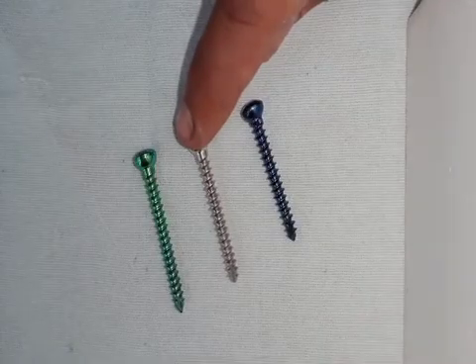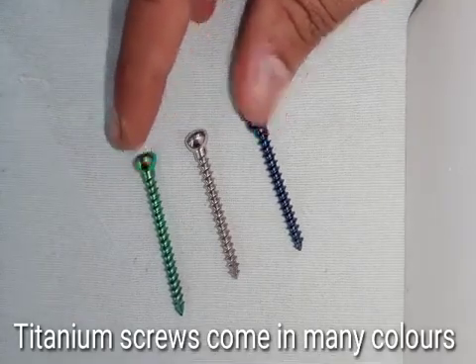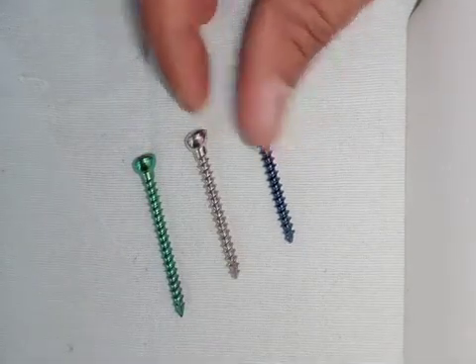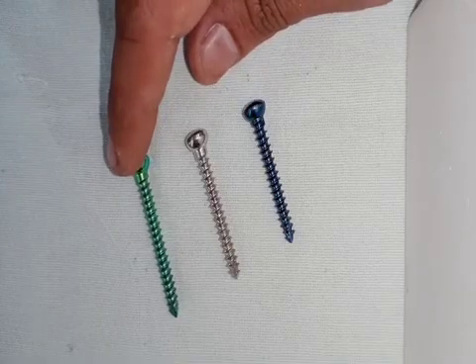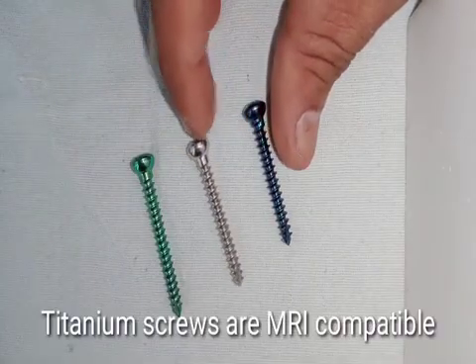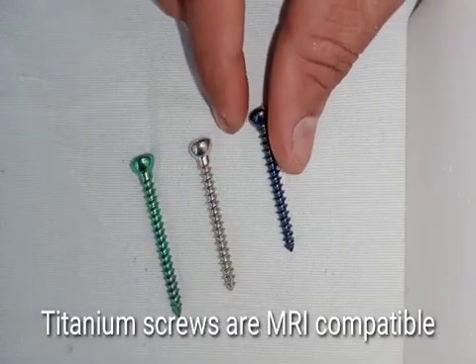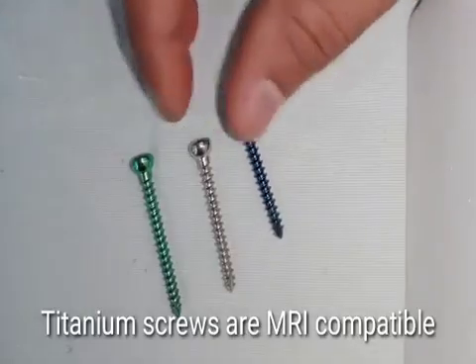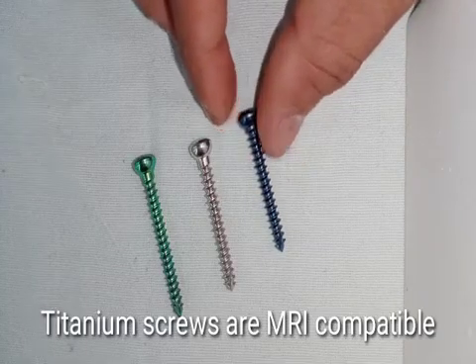This screw is made of steel. On the other side we can see two screws of a different color. That color is a special property of the metal titanium. If the patient can afford it or you want an excellent quality implant with good strength, you can use titanium implants. Steel screws come without any particular distinctive color, giving a silver coloring, whereas titanium screws can come in almost any color — green, blue, yellow, or reddish. So if you see a screw with a particular color like that, you can know it is made of titanium.